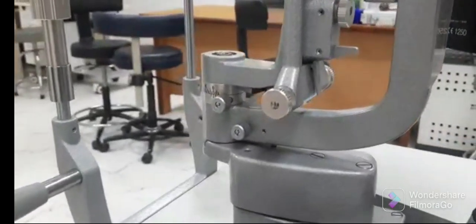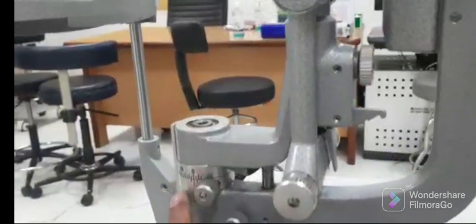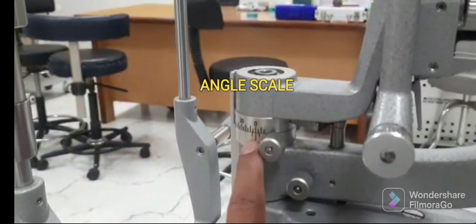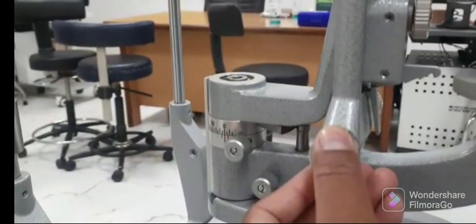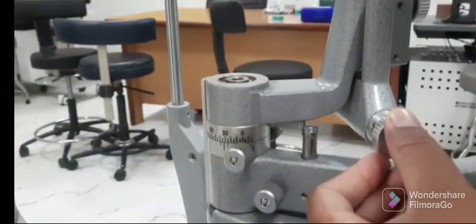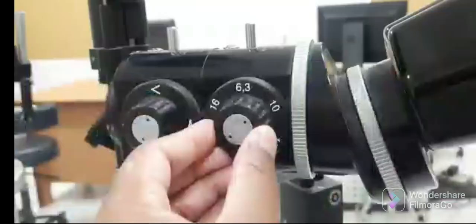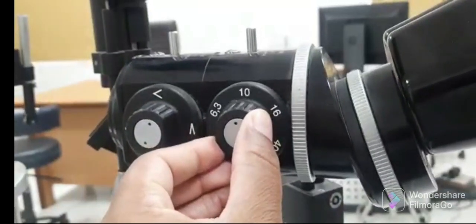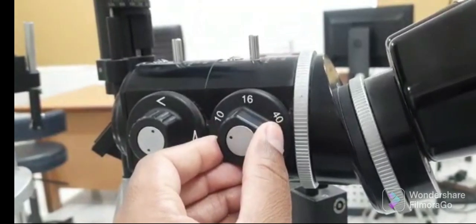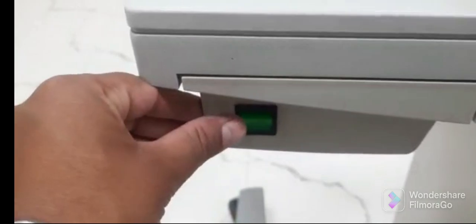Both the observation and illumination arms are mounted coaxially. This is the observation arm, and this scale shows the angle between the observation and illumination arm. We have to turn the illumination arm to set the angle between both of them to 30 degrees. Then the magnification should be adjusted to 10 or 16x by rotating the magnification dial.